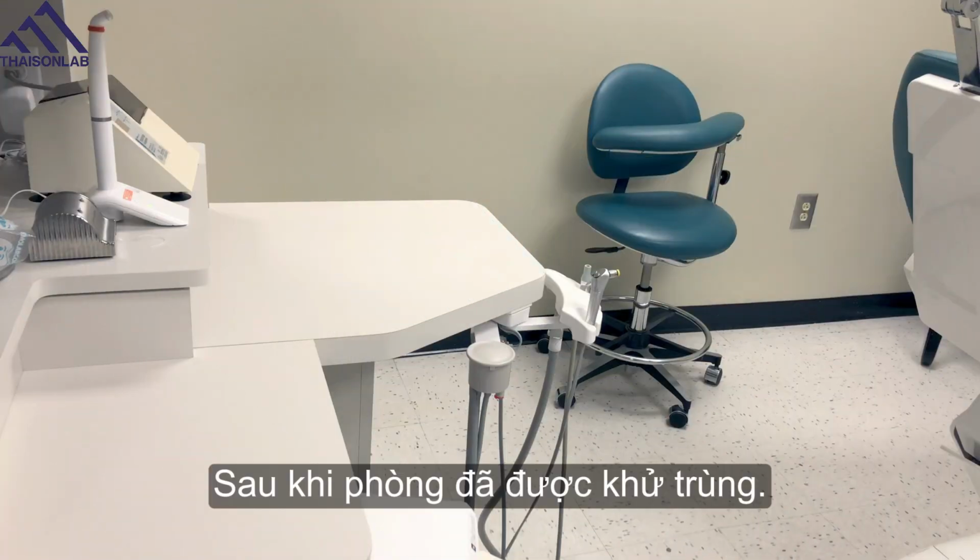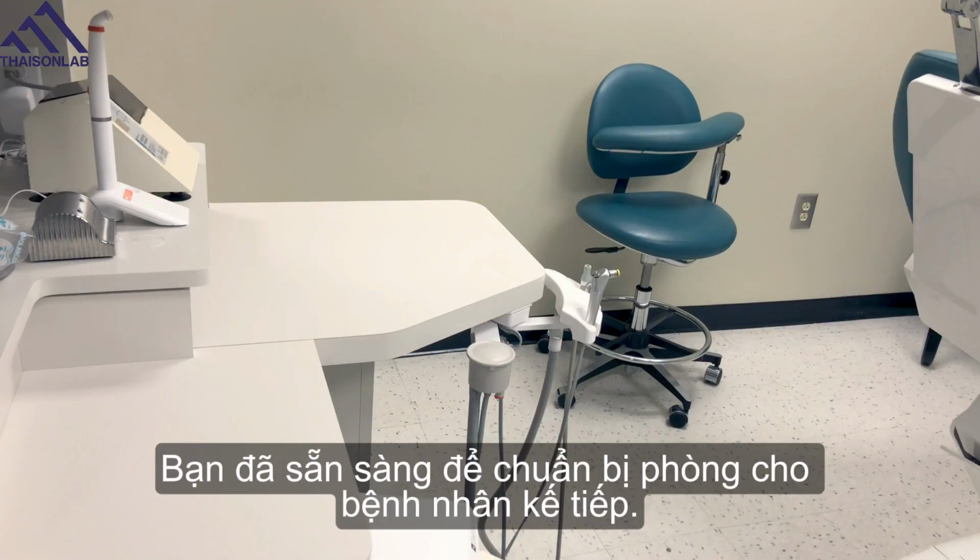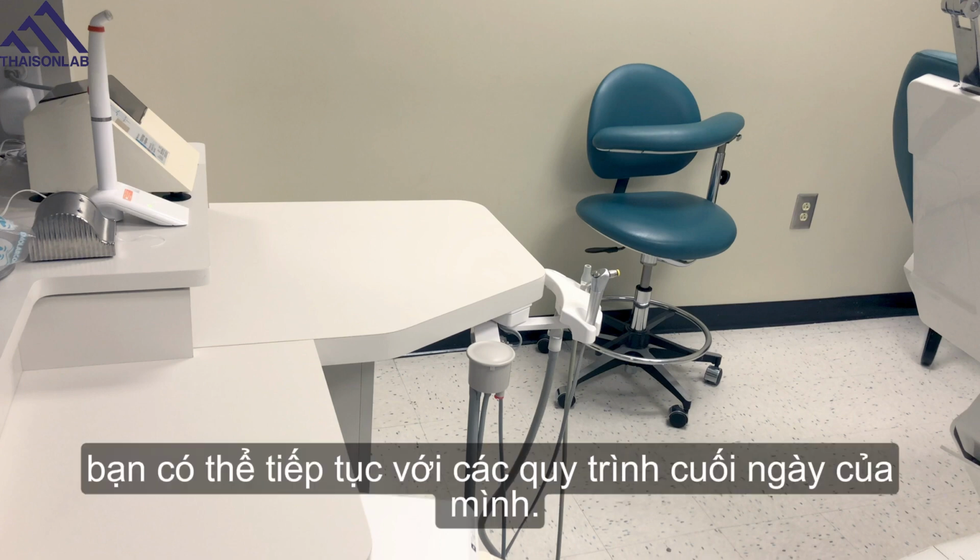Once your room has been disinfected, you're ready to set it up for the next patient. If it's the end of the day, you can continue on with your end of day procedures.